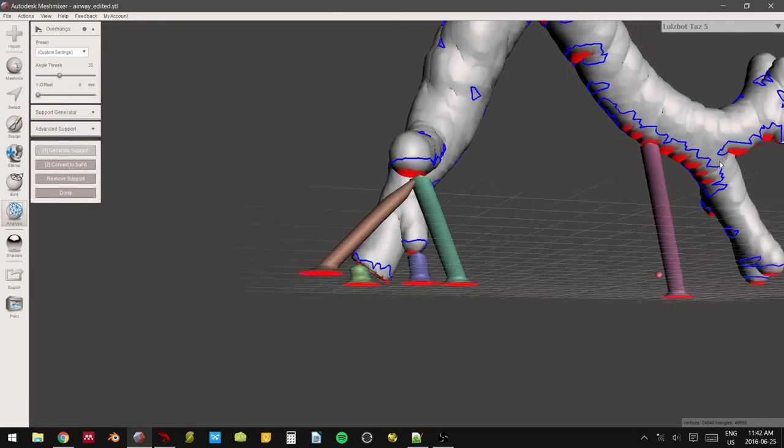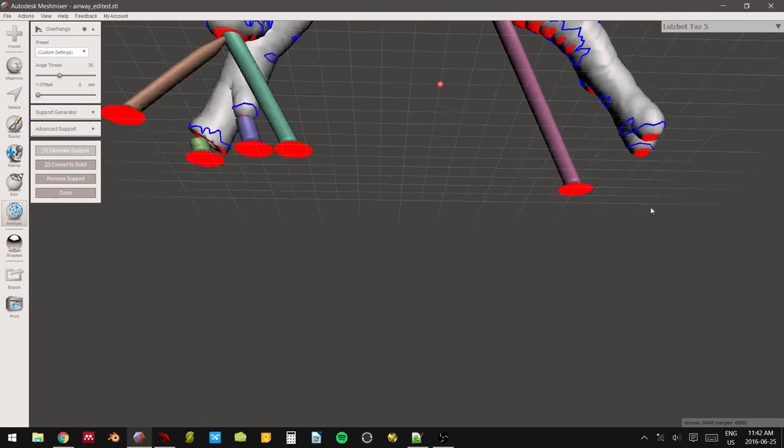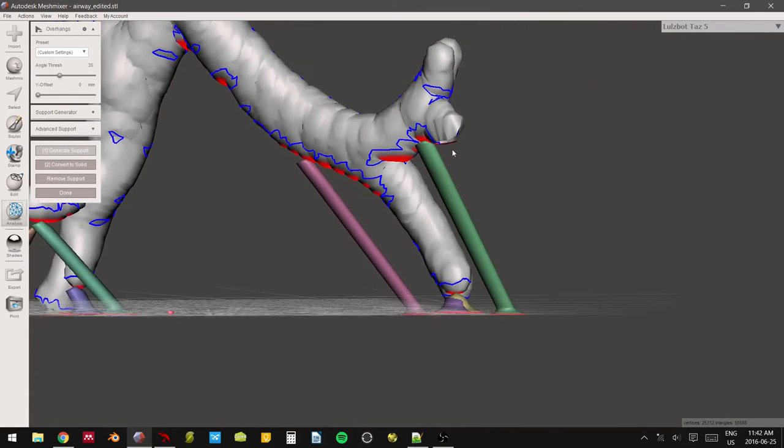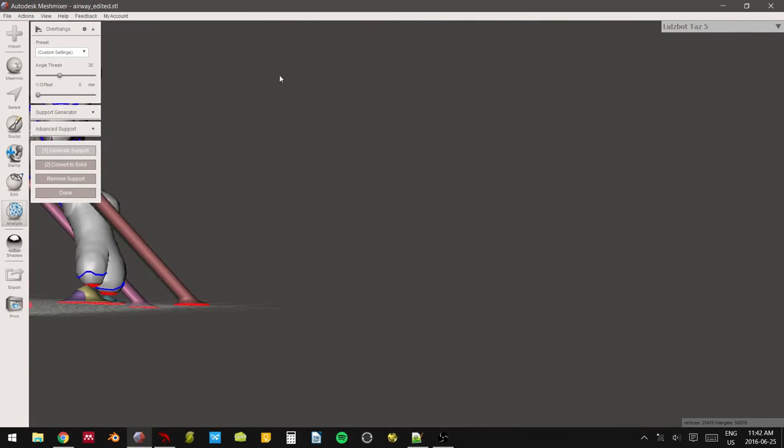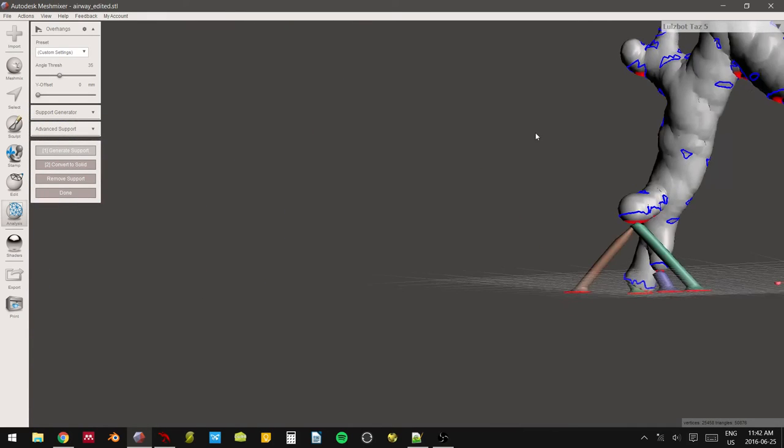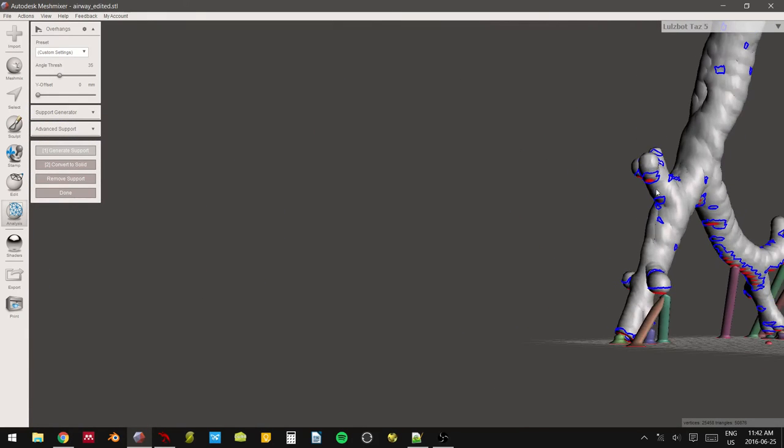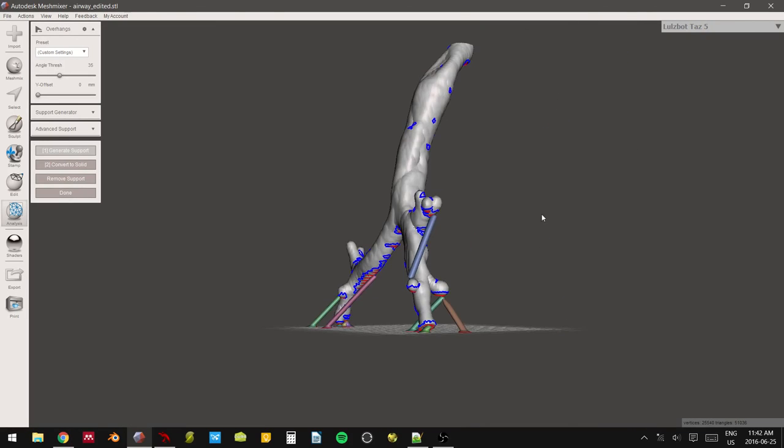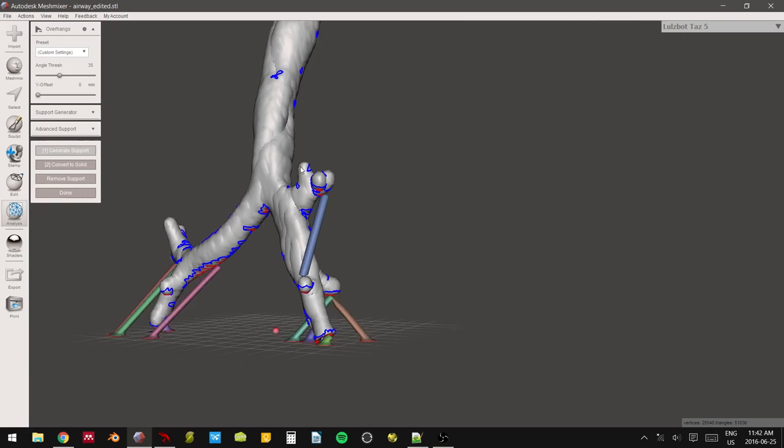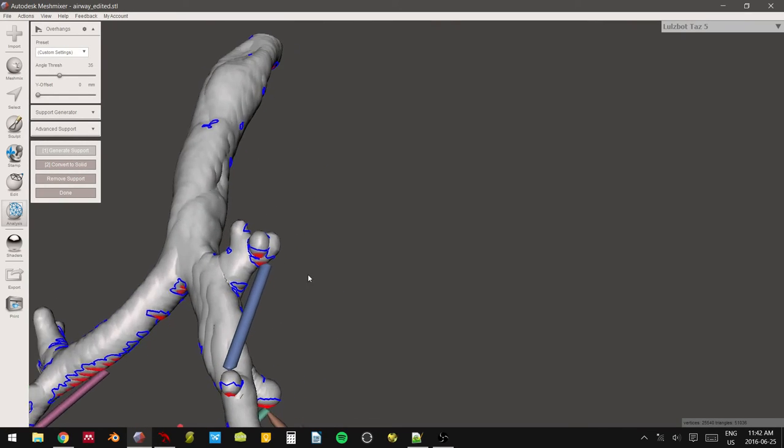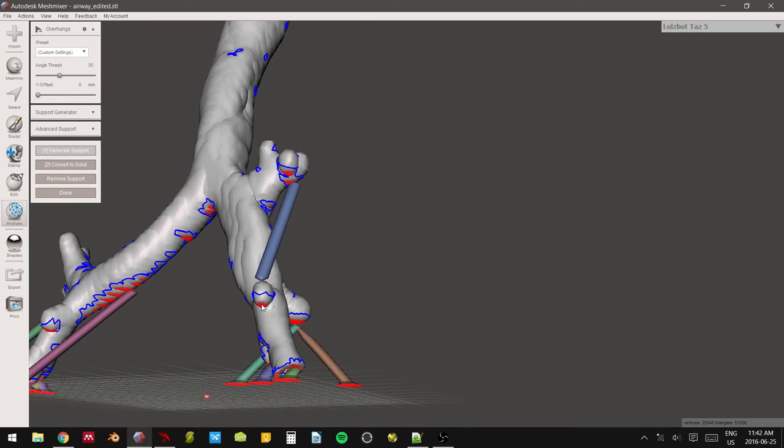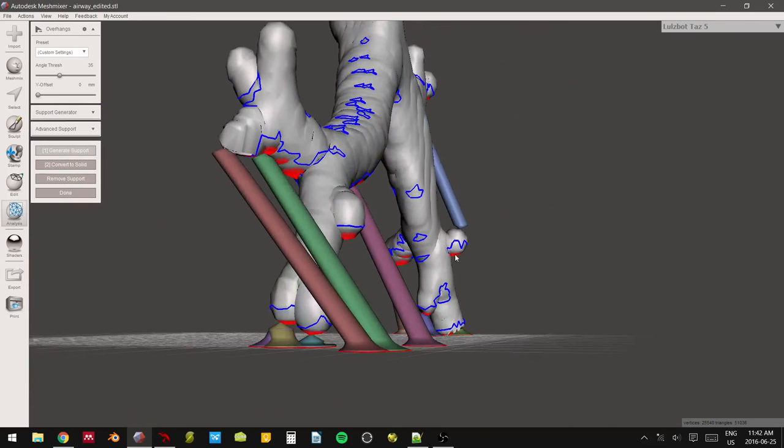Increase the coverage as best as you can. It's really finicky sometimes, so you can also drag. The idea here is that we get good coverage of our model such that it will actually print properly. My middle mouse button is sticking a little. That's okay. Let me do. If you can't generate supports in one direction, rotate your model and then try it again. Again, this process is somewhat finicky.